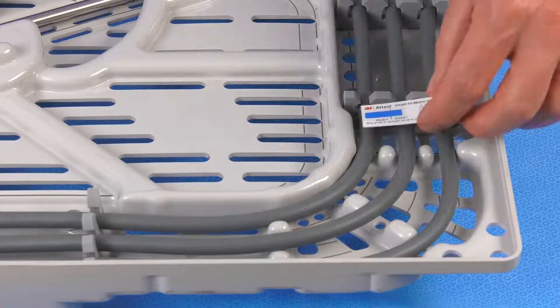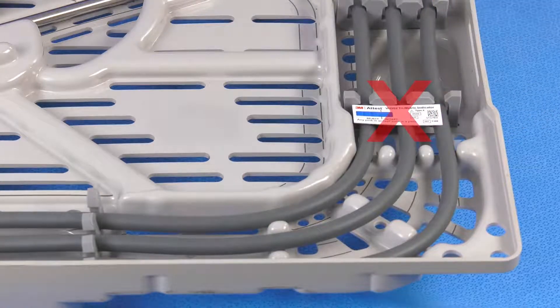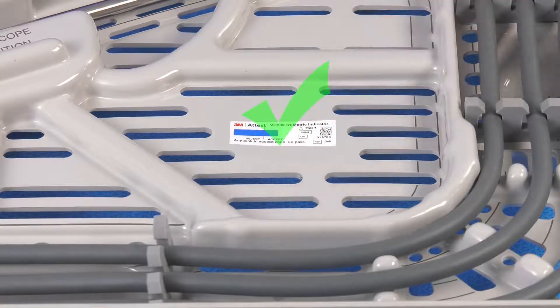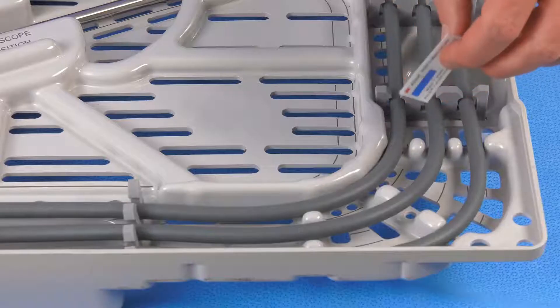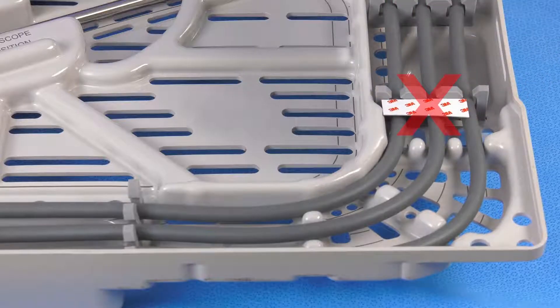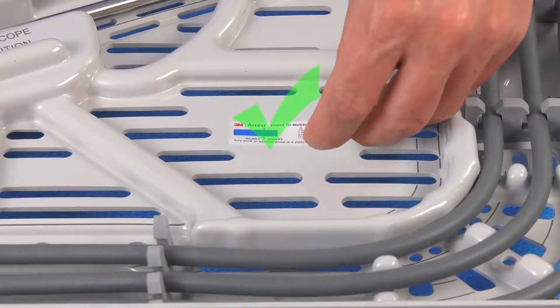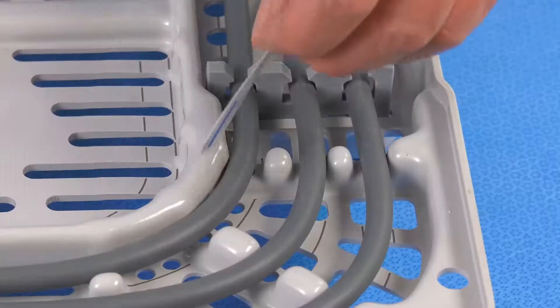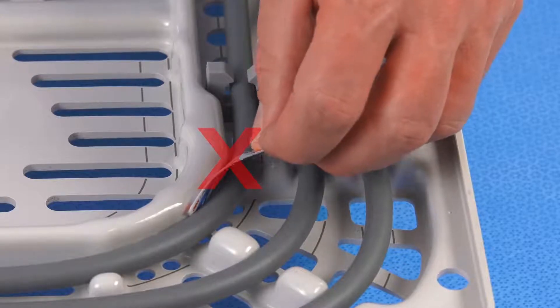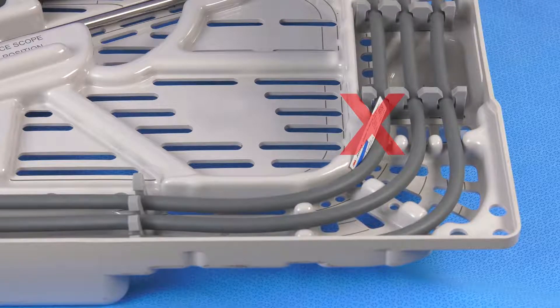Do not place the CI directly on top of instruments. If possible, place the indicator in such a manner as to avoid direct contact with instruments. Do not place the CI face down — place the CI with the graphic side up. Do not bend, pinch, or cut the CI. Do not wedge the CI in a crevice, crack, or underneath items.